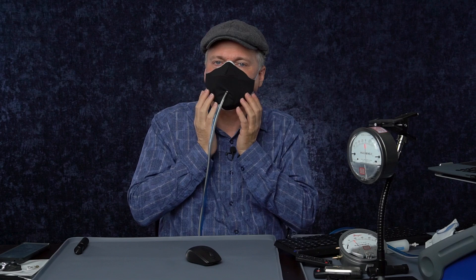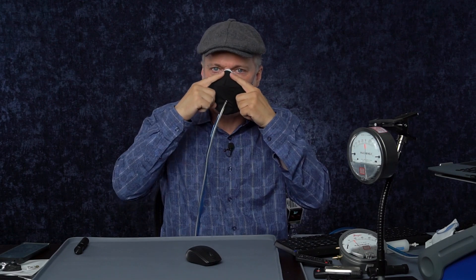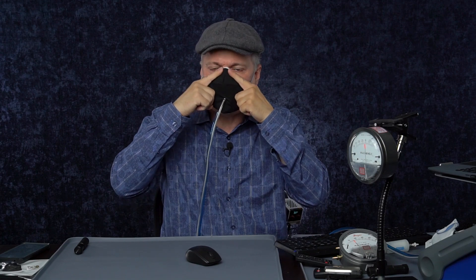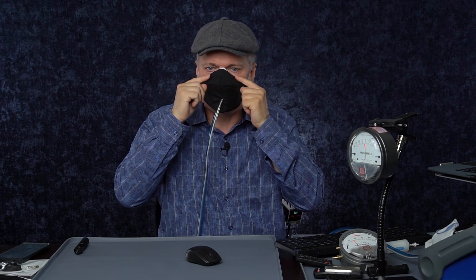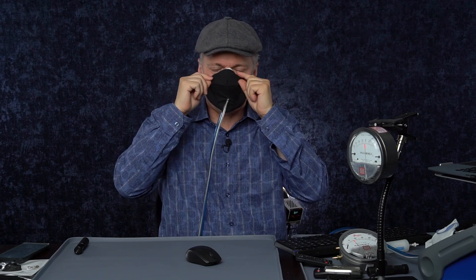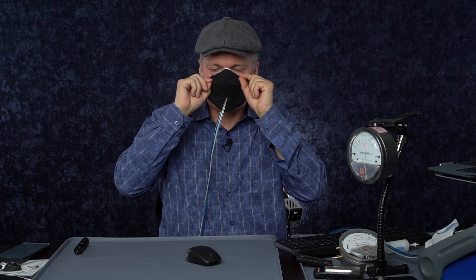I've got the cover on. I've purged the mask. I'm ready for a fit test. But there are a few observations I want to point out before I test. One, it seems fairly breathable — not too bad. But because the cover is outside the mask, I feel like it's redirecting some of the exhaled air in that gap underneath out into my eyes. I can feel a little bit of airflow this way, which I don't love. Also, because there's no nose wire in this thin fabric, it doesn't conform to my nose like this does. When I exhale it puffs up a little bit, and sometimes it gets in my sight line. Not a huge deal, but one of the aspects of not having a nose wire.